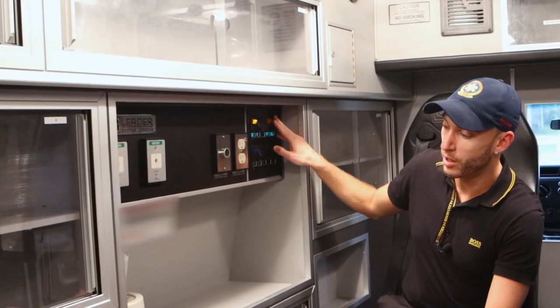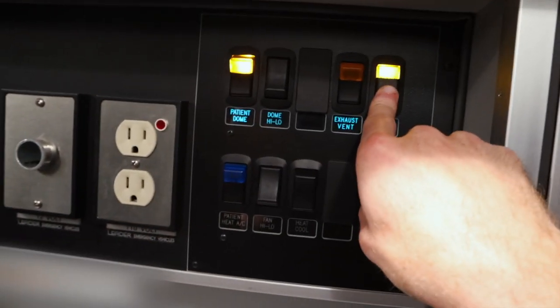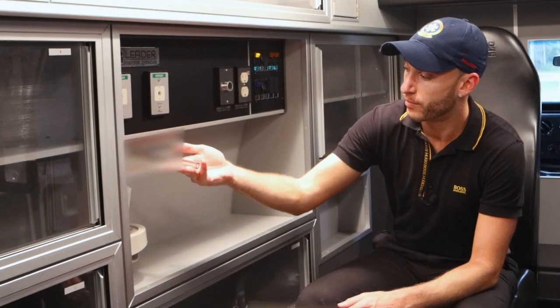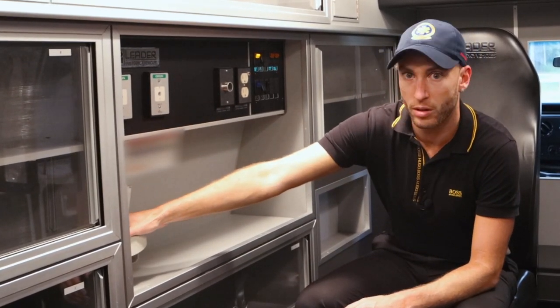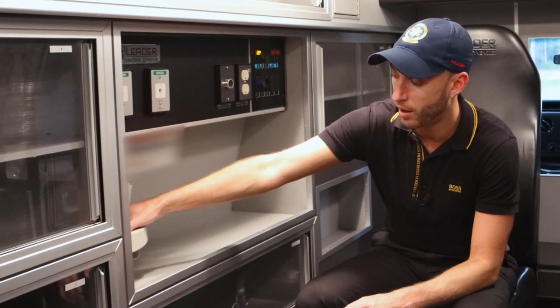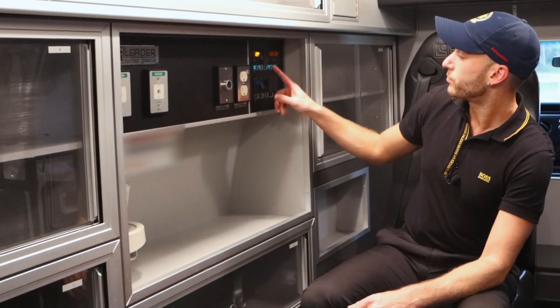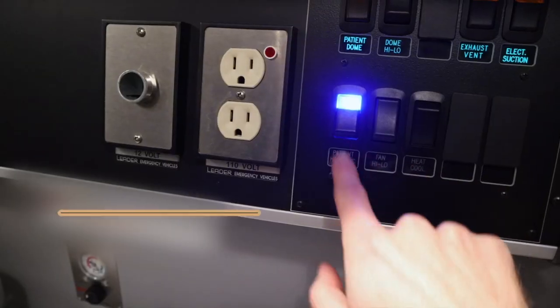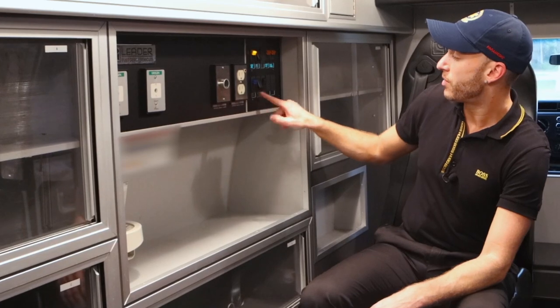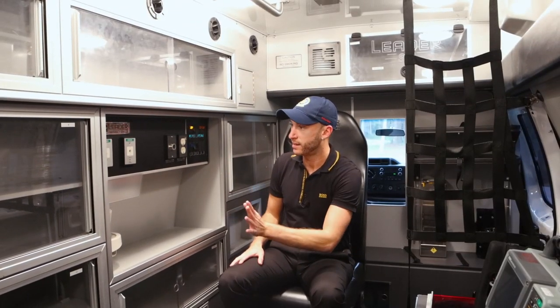Now, this you're gonna hear right now. That is the actual suction coming out of here. So there would be a suction catheter set placed here, and you have the actual suction supplies usually tucked in right underneath. And that's going to be the heat and AC — you have the fan settings over here. So that's all we have over here on this side.